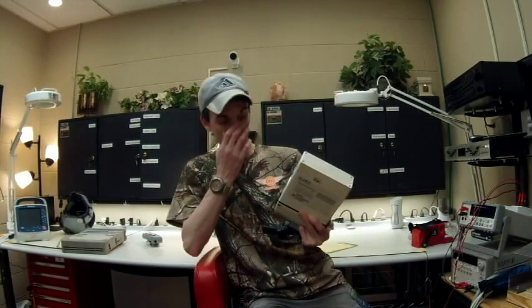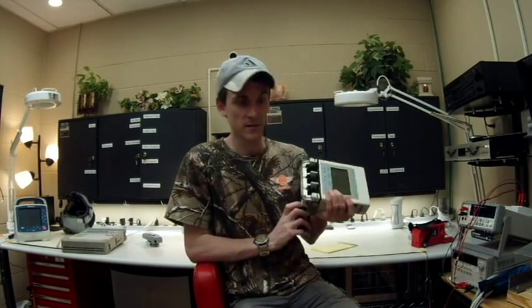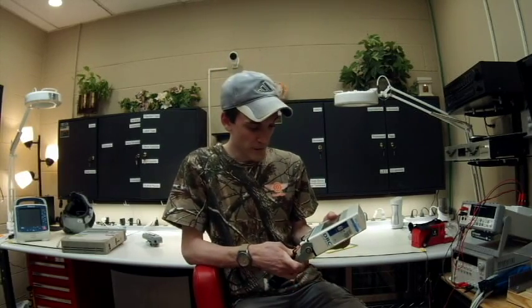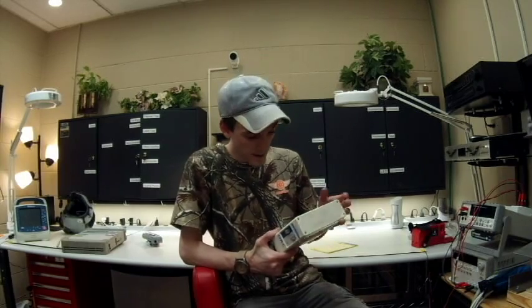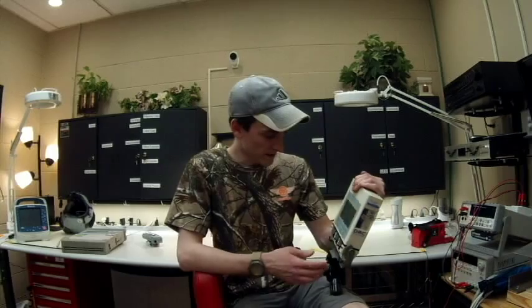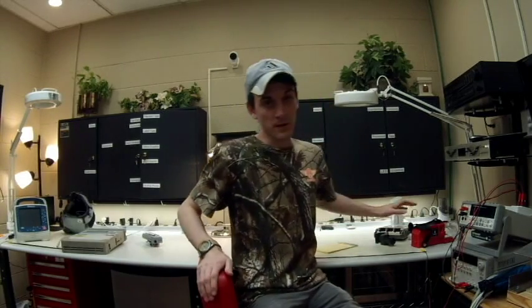Next I have our infusion pumps, made by Alaris — this is the 2860. There are a couple of different models; they're pretty much all the same. Three chambers down here for various drugs, and there's a drug catalog log so they can choose things like Levophed or norepinephrine and keep track of which ones they use. This one is technically out of service — they could be broken units or just locked up, which is usually the case.